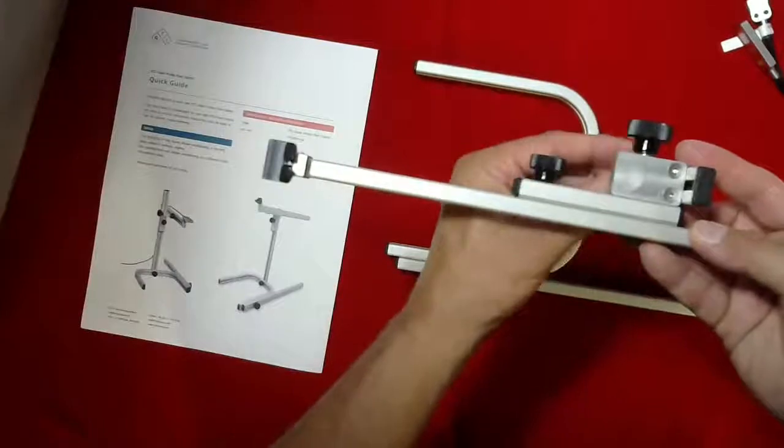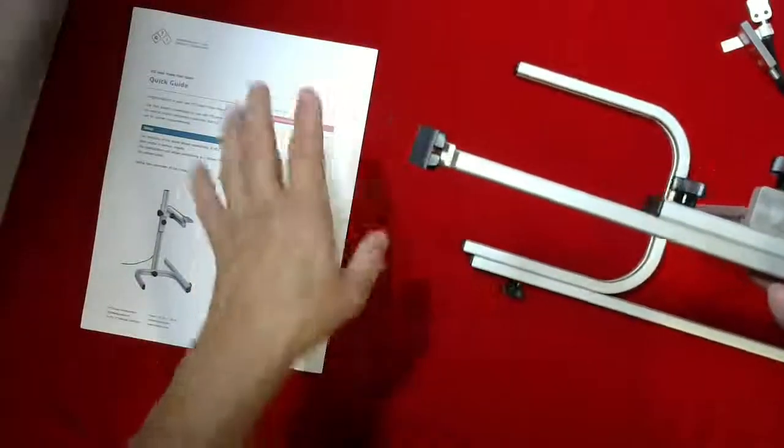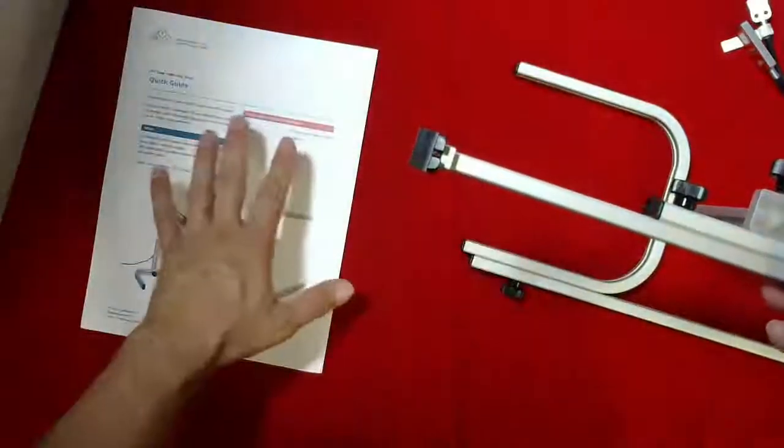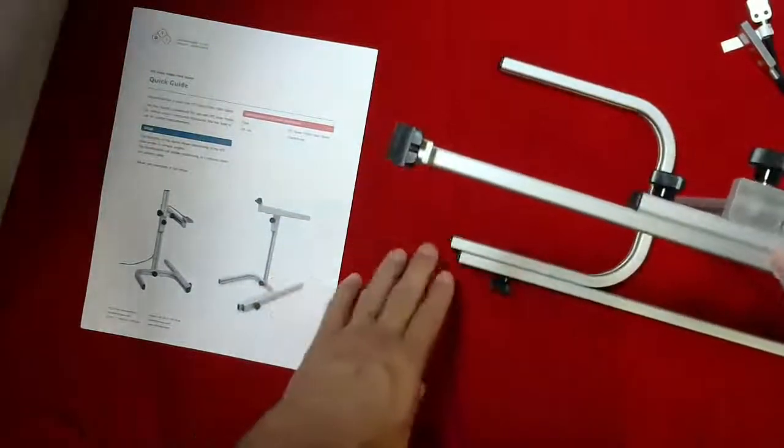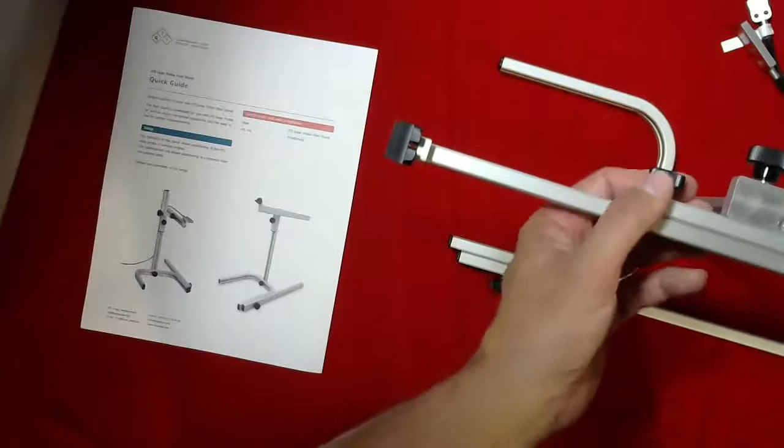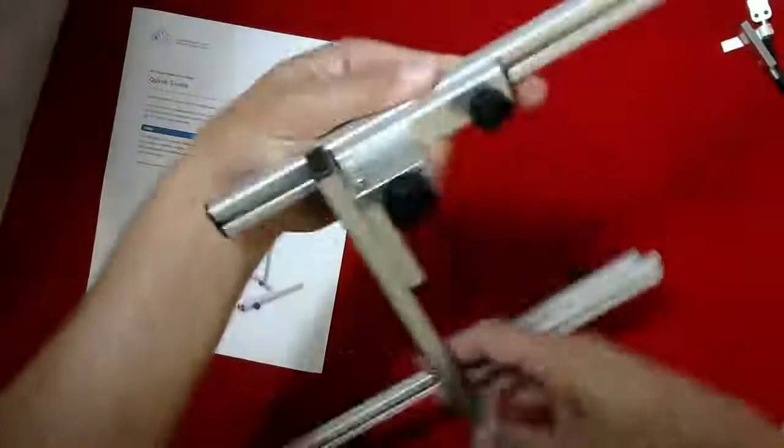Typically this is used to hold your dose probe above a patient phantom. The patient phantom will go below, and you'll be measuring the entrance dose before the x-rays hit the phantom.